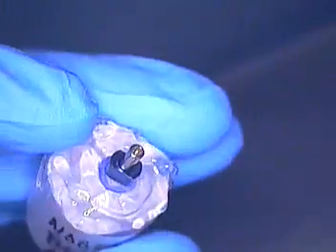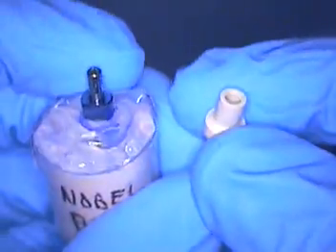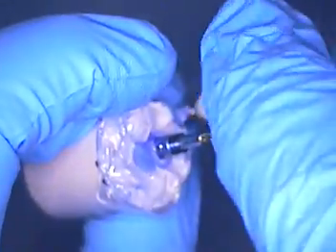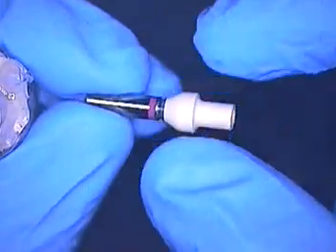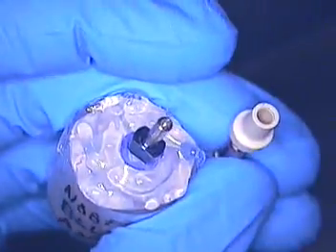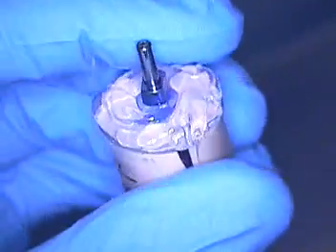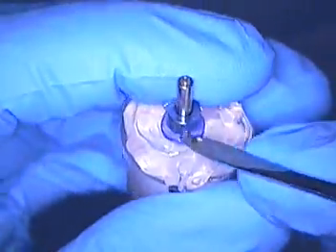I wanted to mimic the Straumann idea. So here's Straumann and here's Nobel. If I take this out, I'm going to find that the diameter of the Straumann is exactly seven millimeters in diameter at its thickest point. It has a nice S-taper to it, and that's what I like on the bone level. This is going to go in the molar region — I just made this earlier this morning.